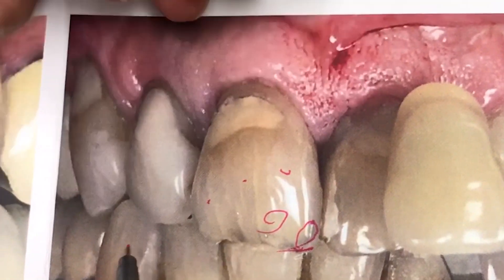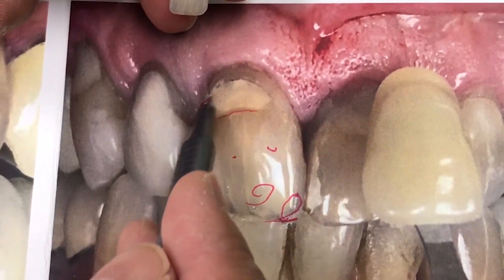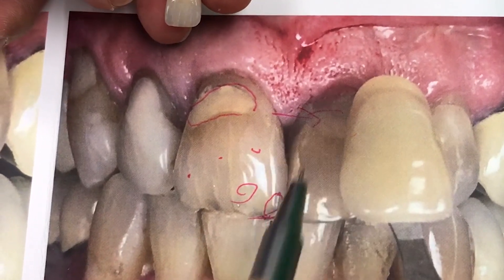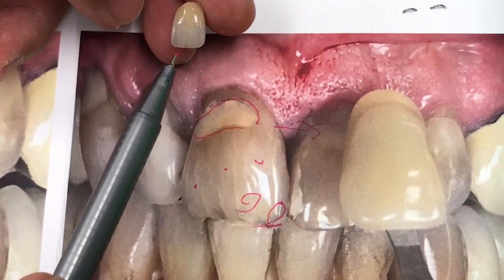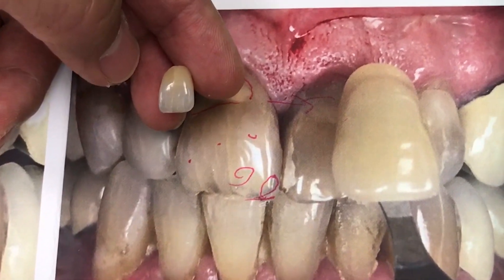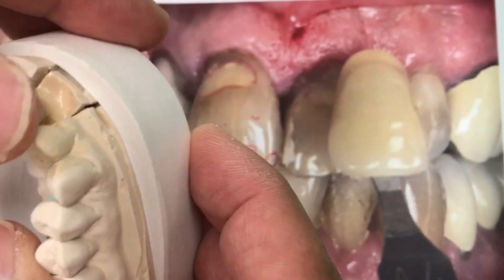Here is a composite patching — I don't have to follow exactly here because this is new and that is old. Anyway, you finish a single unit and send it all the way to California.